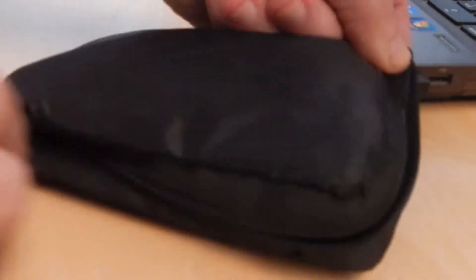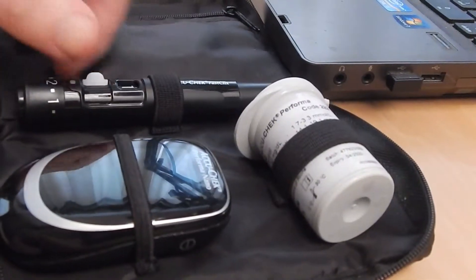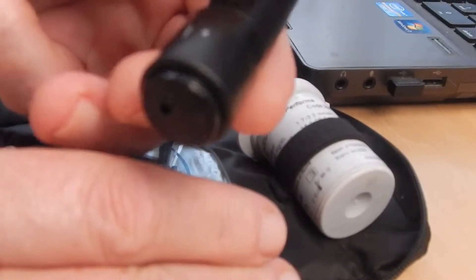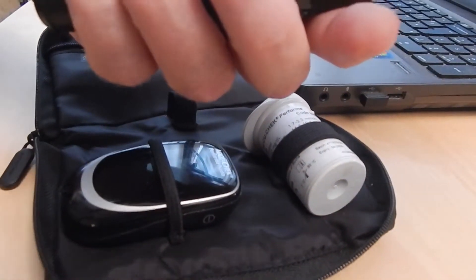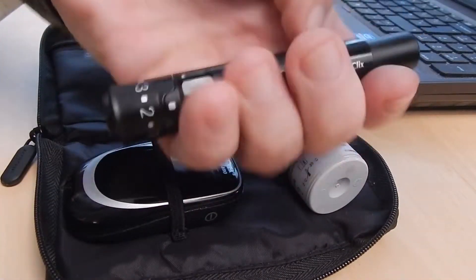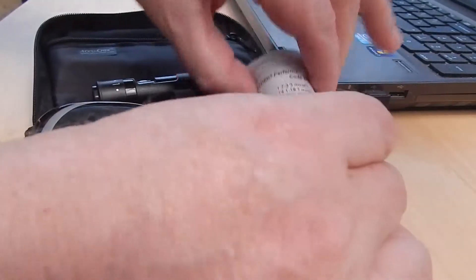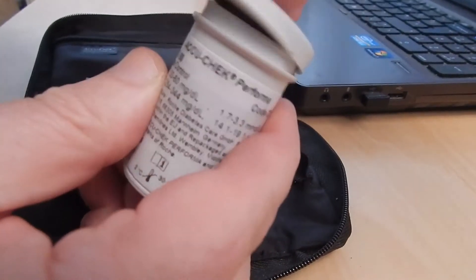This is the process of testing one's blood sugar. This is a pack I got free from the doctor. This is the stabby device and it has six lances inside it. The lances are exchangeable — you just swap them out. It's supposed to be single use, then you turn to the next lance and move on.